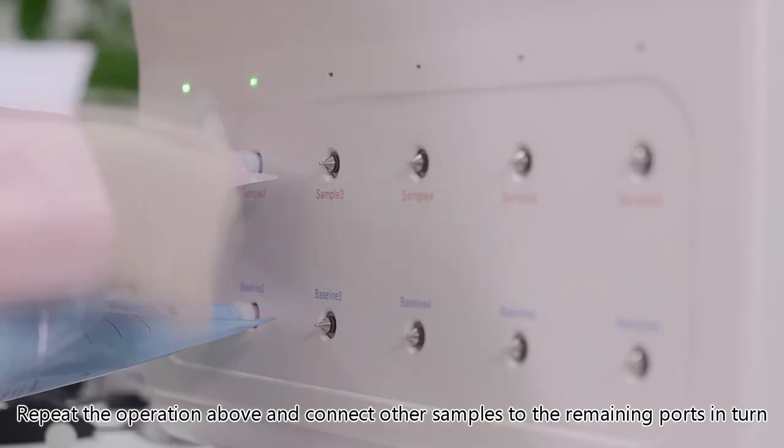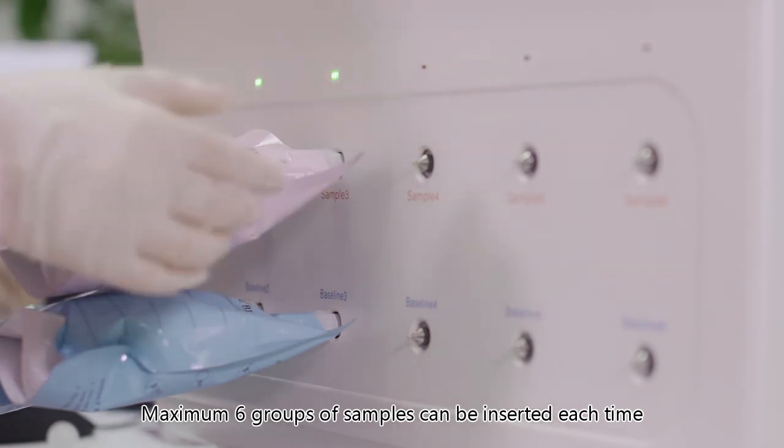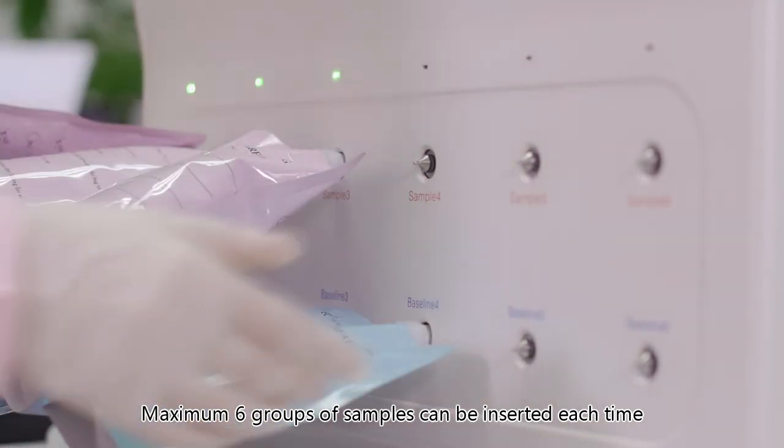Repeat the operation above and connect other samples to the remaining ports in turn. Maximum six groups of samples can be inserted each time.